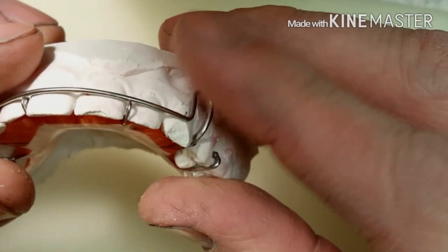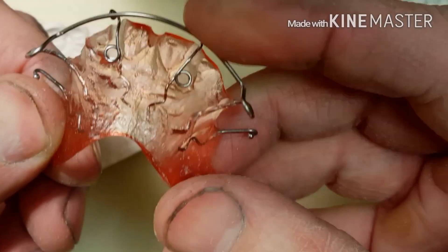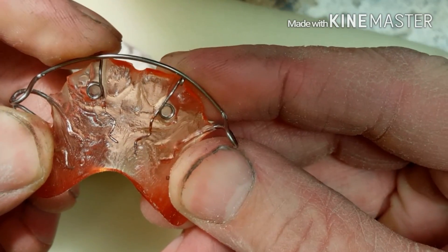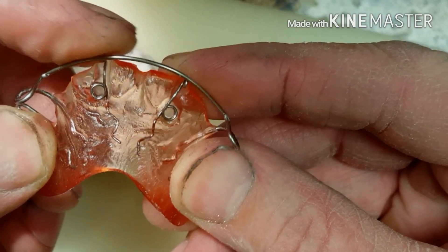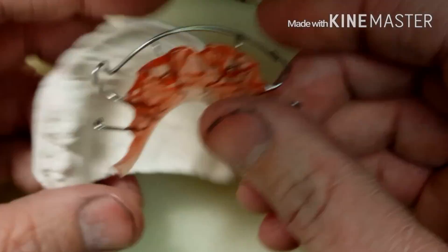This is what the springs look like underneath after they've been waxed out, and fingertip pressure will adjust them—hence the name finger springs.